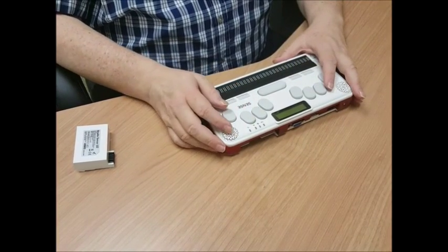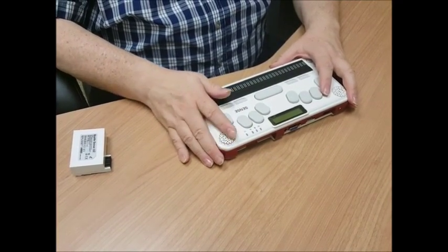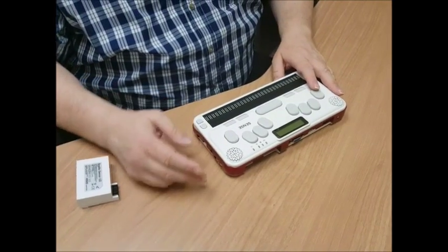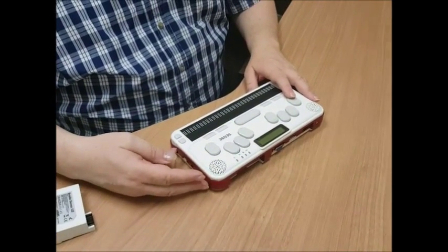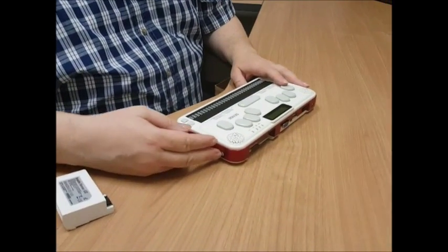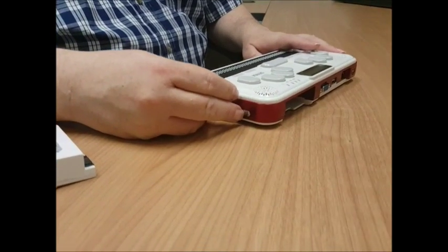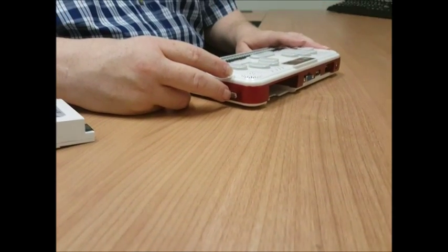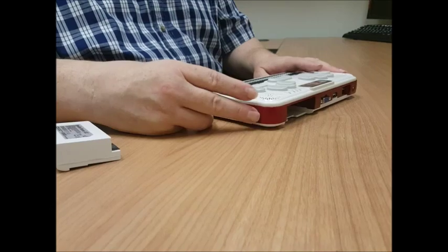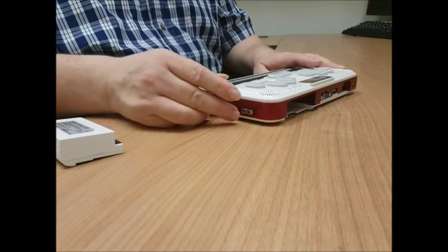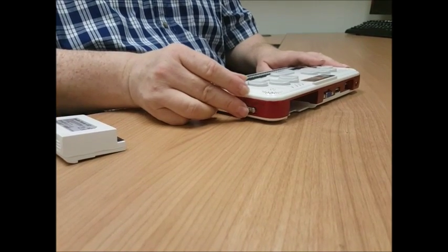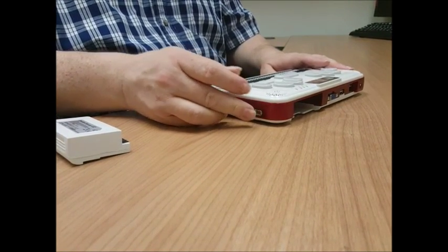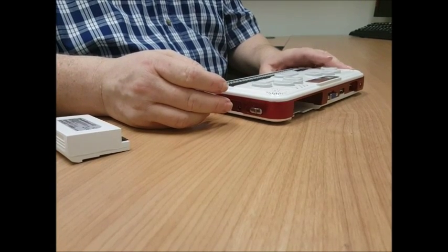And then now we're going to move around to the right side of the unit, where my hand is. In the very back of this unit is a key lock switch. It's a slider. If it's all the way to the front of the unit or closest to you, then the keys would be locked. Push it all the other way back, all keys would be unlocked.